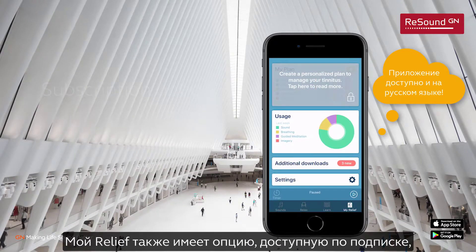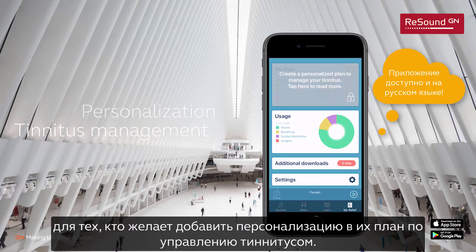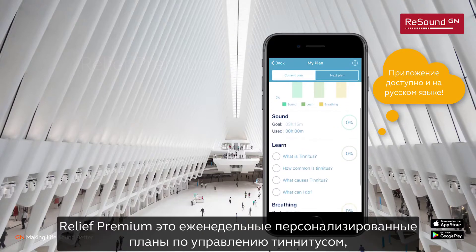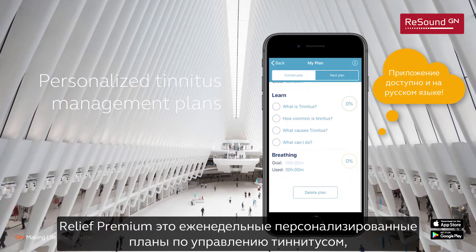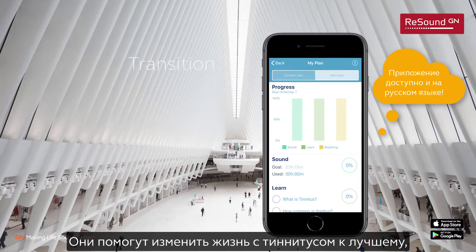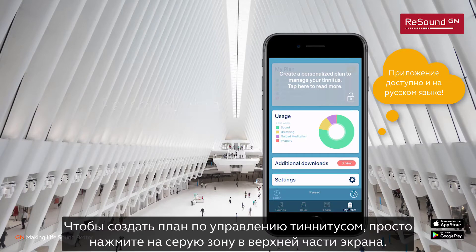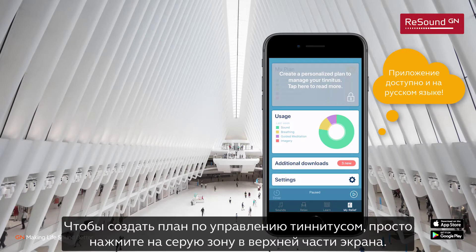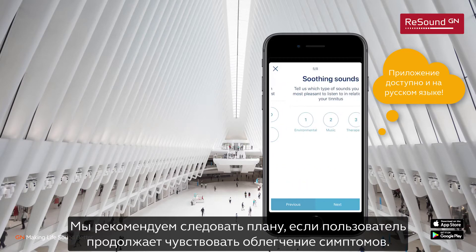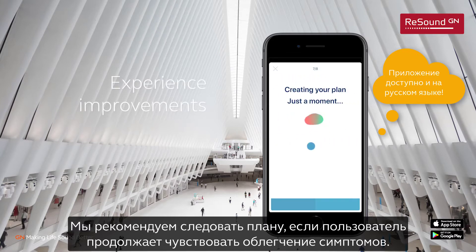MyRelief also offers a subscription option for those who want to add a little bit more personalization to their tinnitus management. This subscription is called Relief Premium. Relief Premium will create weekly personalized tinnitus management plans using a variety of the tools already discussed. This is a way to transition into a better life with tinnitus, guided by a personal plan directly from the app. To start a plan, simply select the grayed out area at the top of the screen and the flow will guide you through each step. We recommend using the personalized plans as long as the user experiences improvements in their relationship with tinnitus.